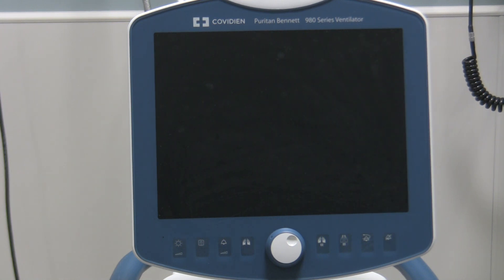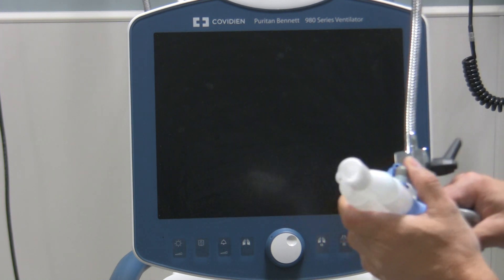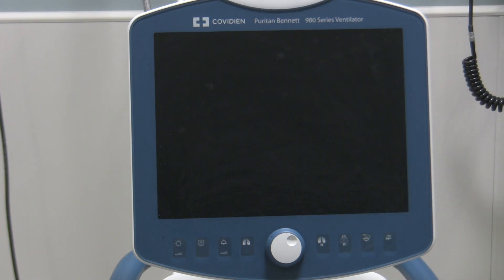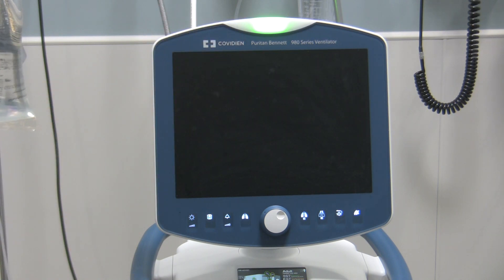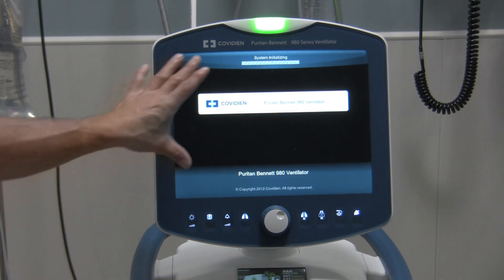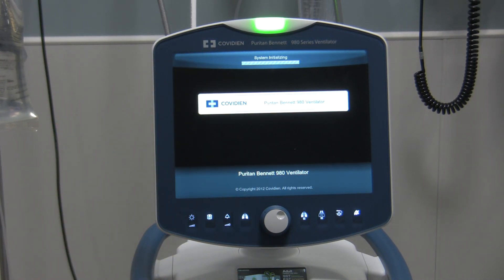We also happen to have the circuit on this device uncapped, because I'm thinking it's got a patient attached. You can see the lights come on. We got the green light. We've got our status screen down here — it's initializing. Like I said, we did the pre-use check previously, so now all we have to do is go into new patient and choose what we want to set.